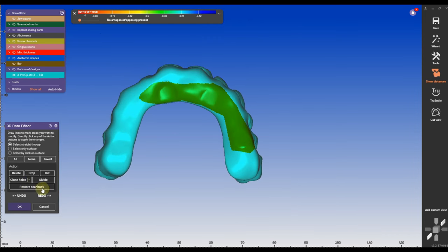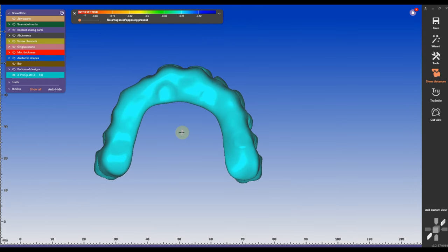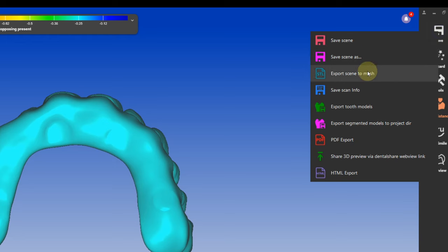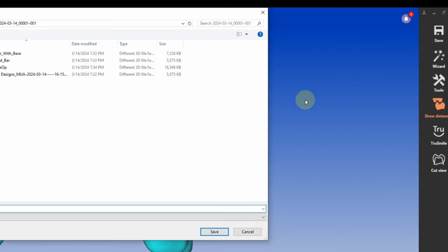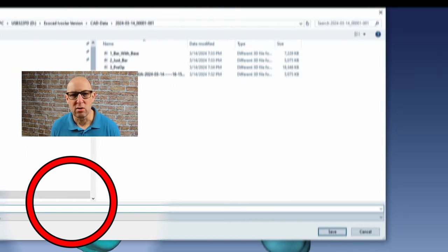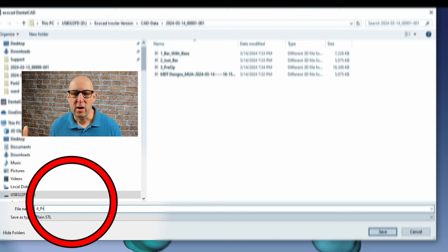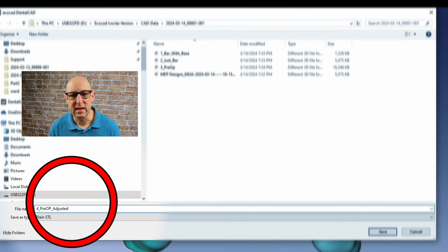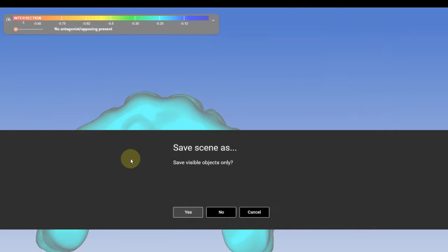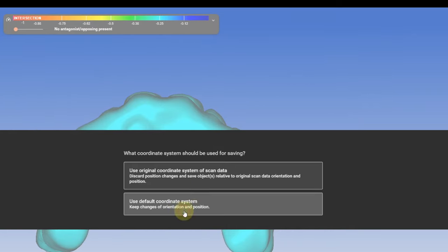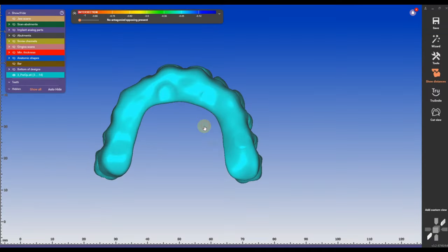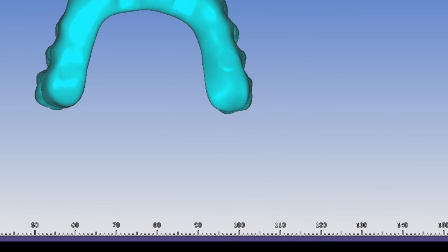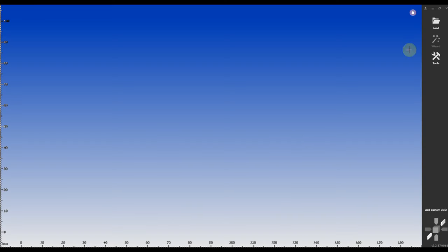I'm going to export this again as a mesh. I'm going to just click on the same thing, you can call it pre-op scan solid, you can call it pre-op scan adjusted. I'm going to call it pre-op scan adjusted but you will see later I called it solid.